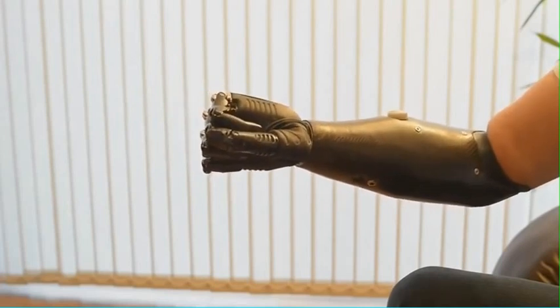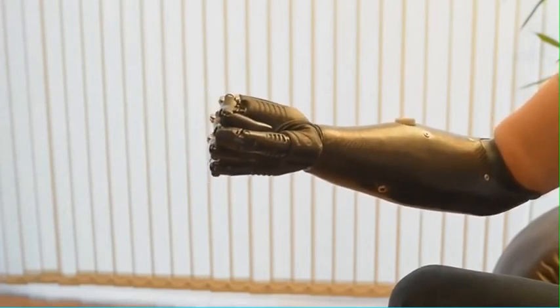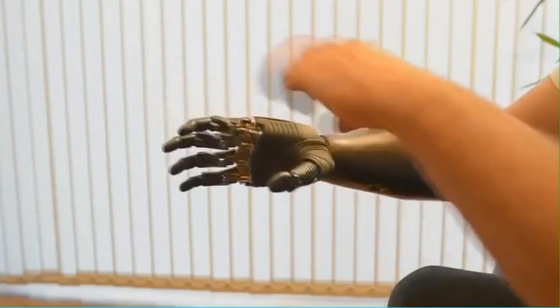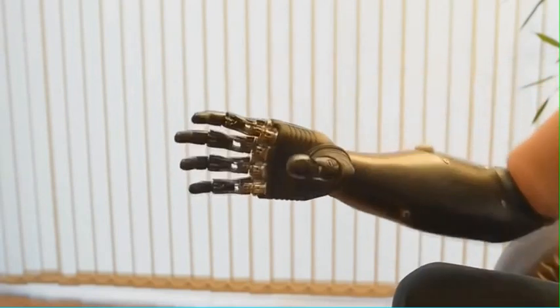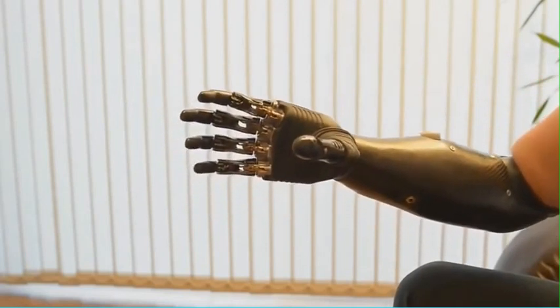This is power grip for heavy things, for shaking hands, for being human. We have this grip here - this is one that scares children and upsets my wife.